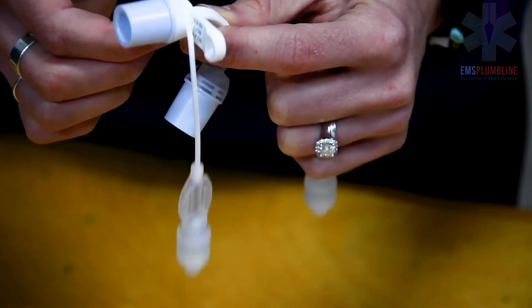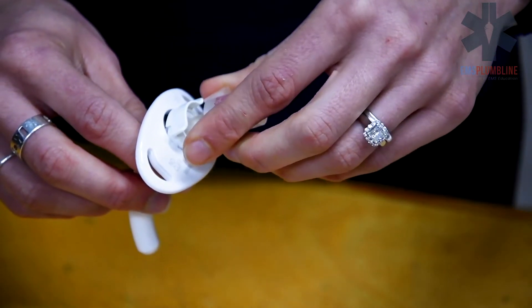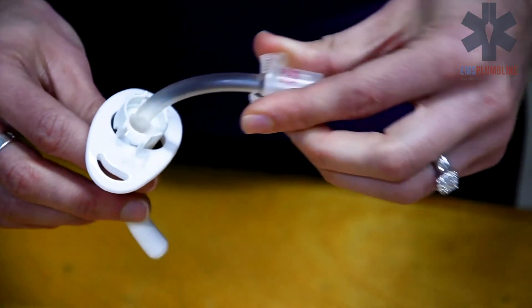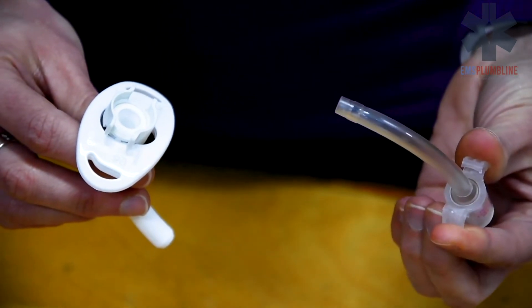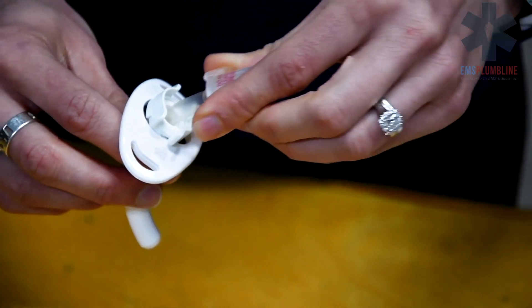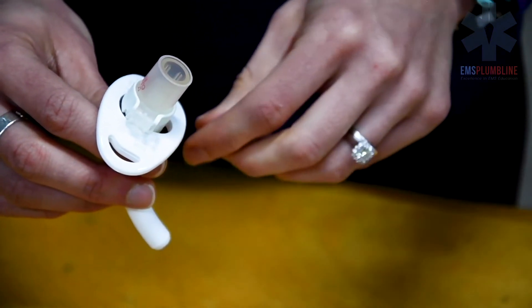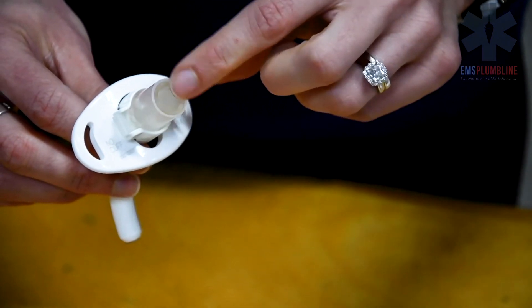An adult tracheostomy tube is larger, not only with the inner diameter, but also the length. Adult tubes can fit an inner cannula, which is changed daily.